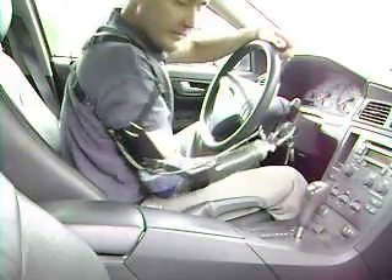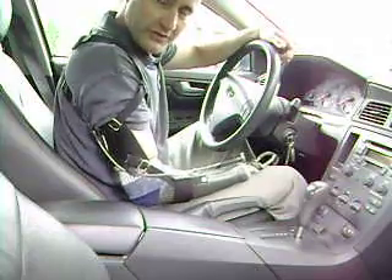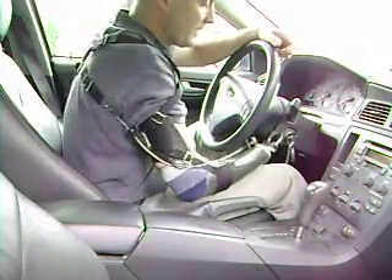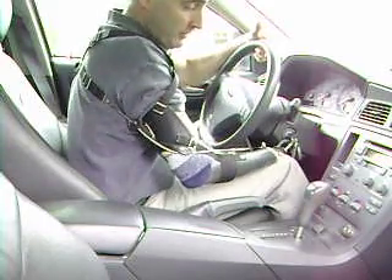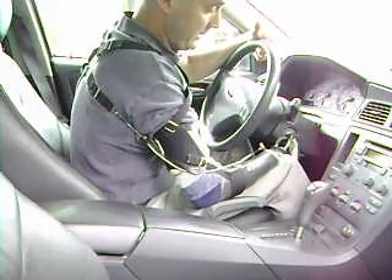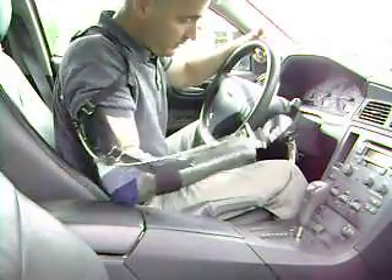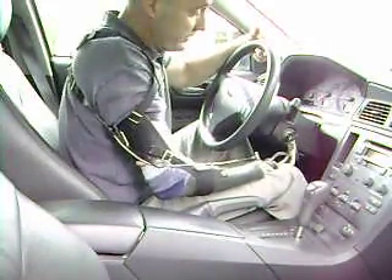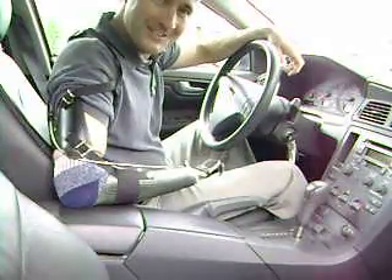But you can push the key with the hook. Because it takes that little bit of extra tension to get the car to turn over, if you put the hook under the key, rest it on top of your knee, and then give a push from the bottom of the key using your knee for leverage, it starts right up. Not too hard, was it?